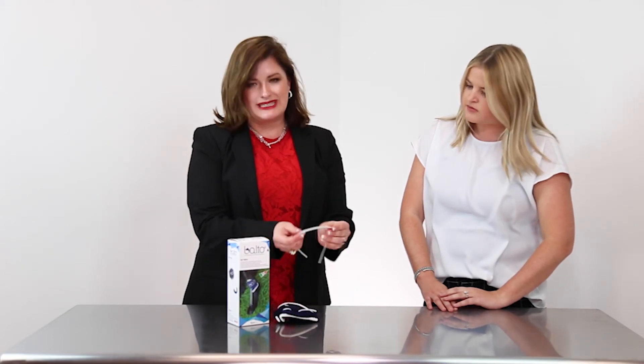What about long-term use? For long-term use, I went over the padded bungee that is on here in the previous section. For long-term use, there is a silicone option in the box as well. This is going to clean up better and last a little bit longer when you've got somebody that will be using it every day.